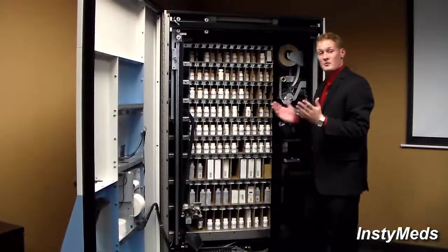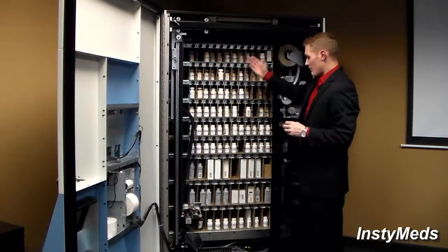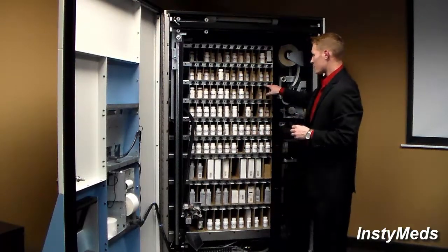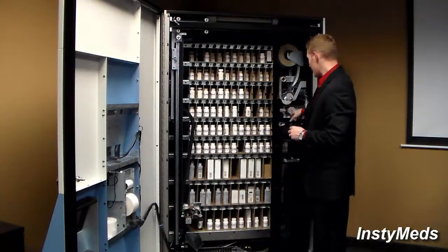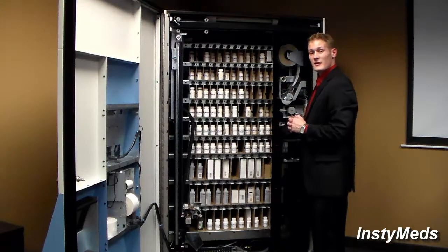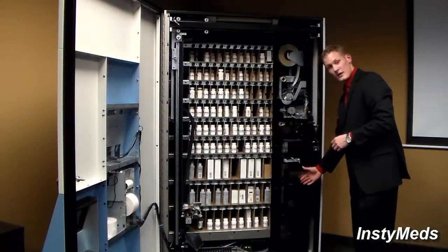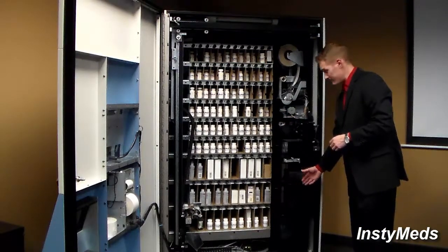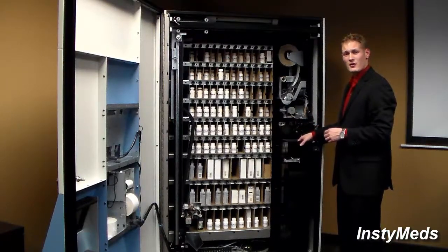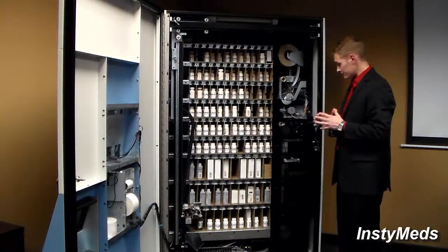So that way, when a patient comes up to the machine, puts in their code, and the medication falls, it goes through a triple barcode check. It is checked on the magazine. Then it goes through an initial label. We place our own label on top of that, and it's checked there, making that 3 times. And then it will go down here to what's considered the dump chute. At that time, if the patient has multiple medications, it will actually be held up here to ensure that the patient receives all the medications at one time.